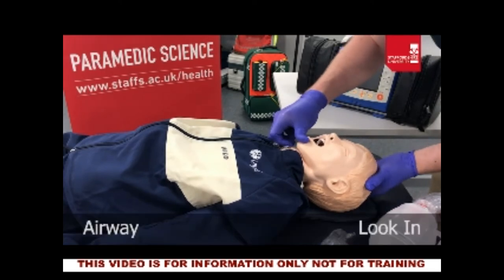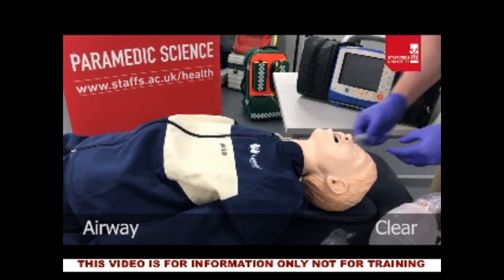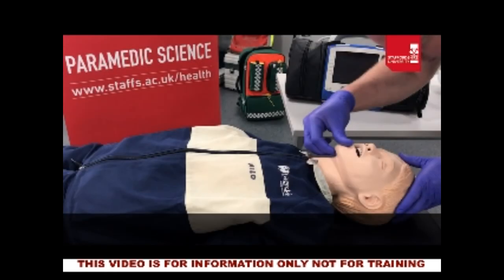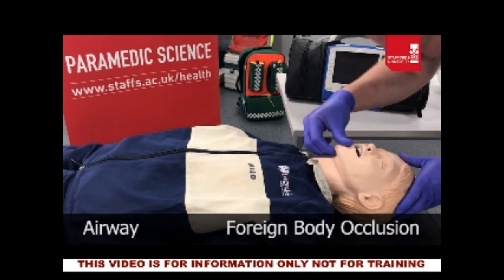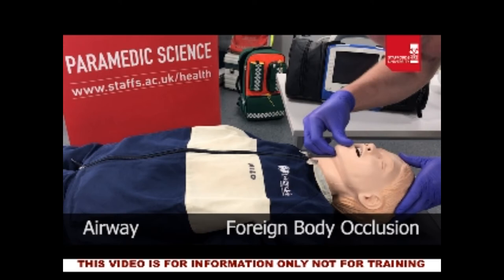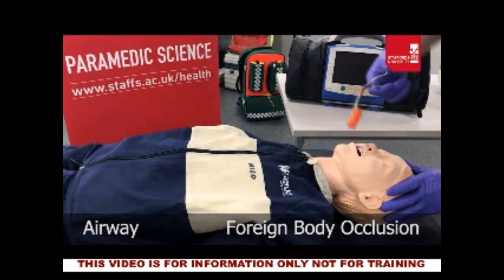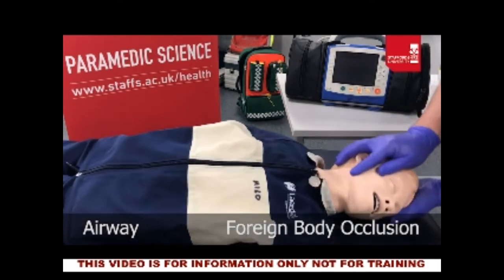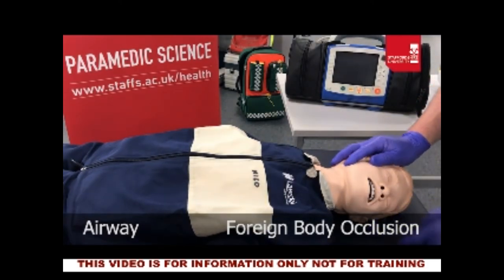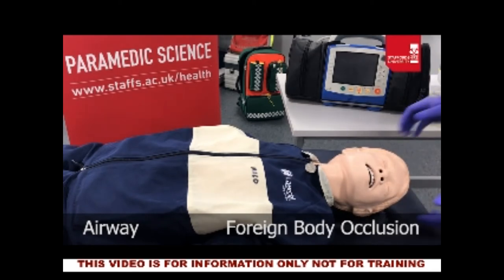At this juncture there are two possible options. If the airway is apparently clear with no foreign body, we move on to opening it and securing it with an airway adjunct. If there is a foreign object obstructing the airway — whether liquid such as mucus, blood or vomit, or a physical object the patient has choked on — we need to remove it first. For a large physical object we use McGill's forceps. For liquid occlusion we use postural drainage, potentially a finger sweep, then suction to clear the airway. Remember to suction under direct vision and only as far as you can see.